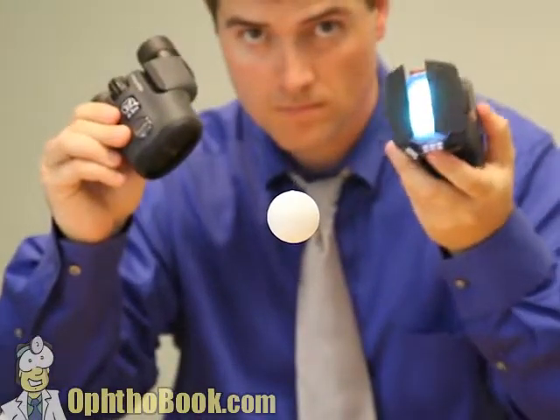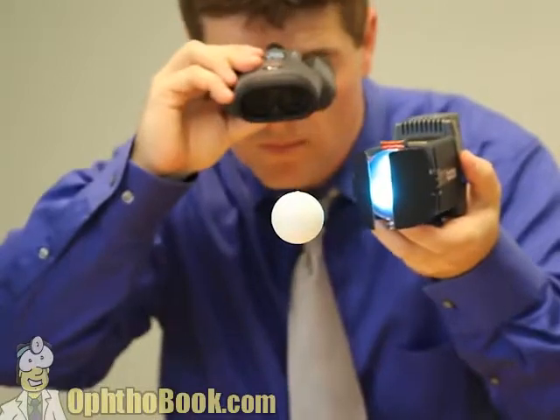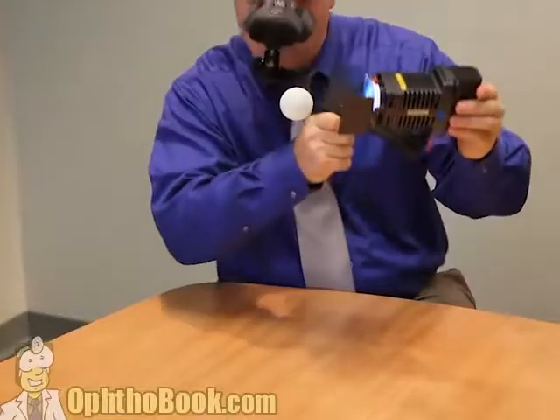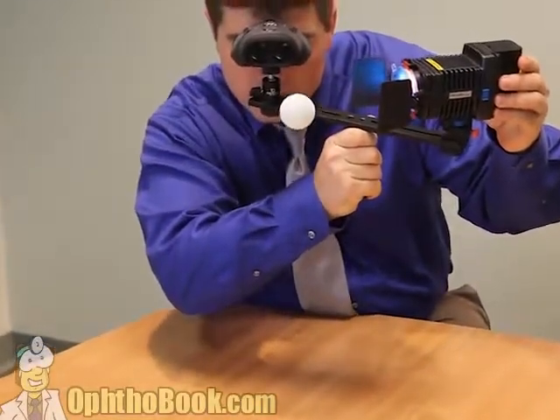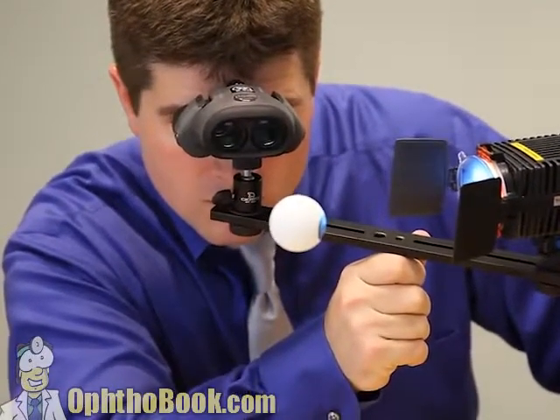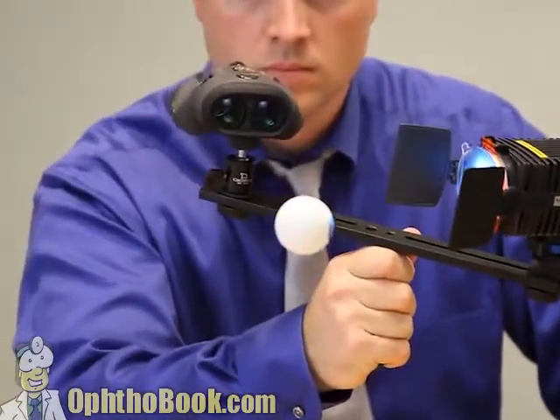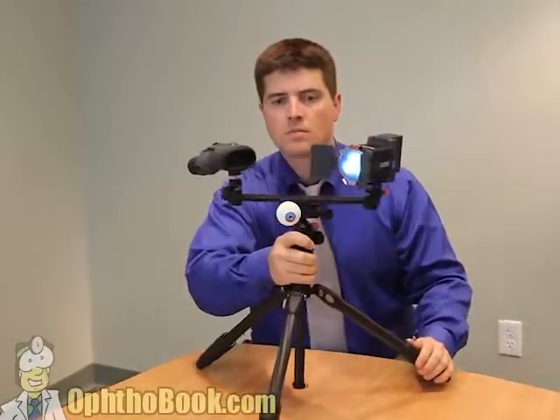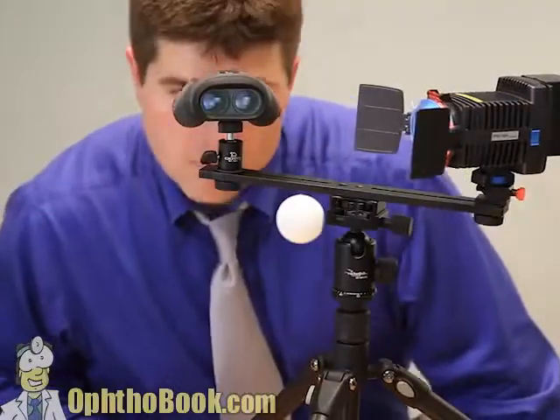So we have a perfect microscope and a perfect light source. But how do we use these things in synchrony with each other? It's very hard to focus them independently. You can put them on a bar so that they're in focus at the same point at all times. This works great, but it's hard to stabilize and hold. So let's put it on a tripod — much better, nice and stable, very little movement.